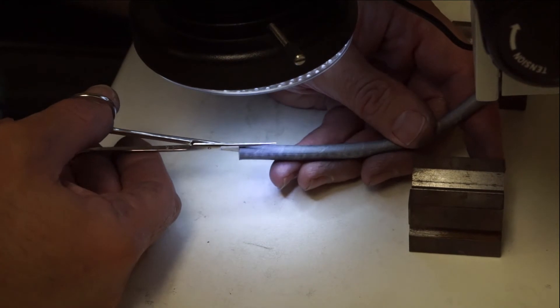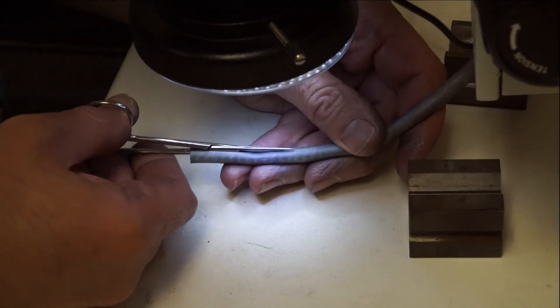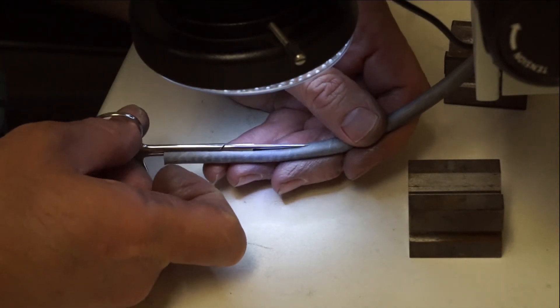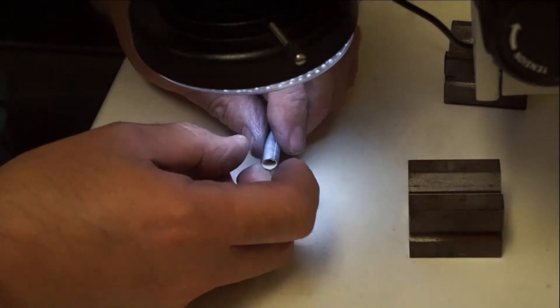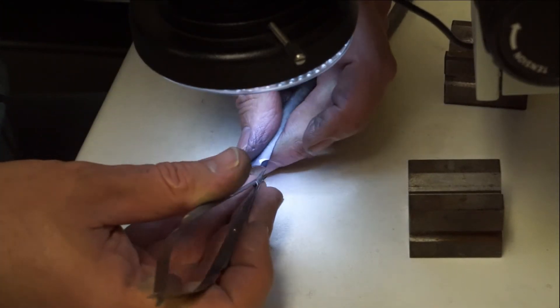Today we will be taking a deeper look into one of our 6.0 millimeter laminated three-layer biopsy channels. This particular biopsy channel comes from a client who has put the channel through repeatedly heavy usage in a GIF XTQ160 scope for about eight months before finally needing a replacement.